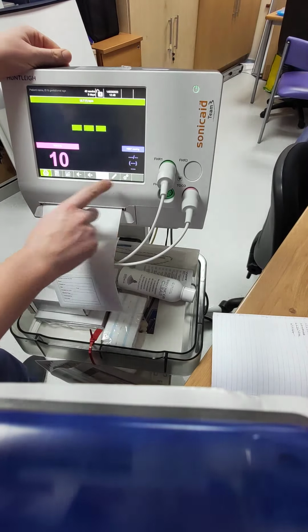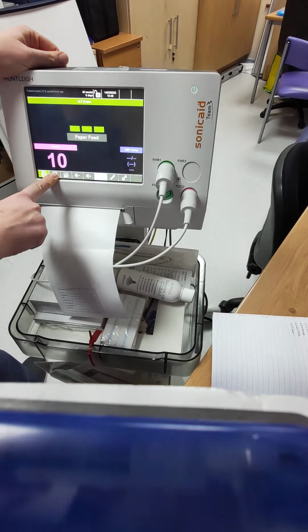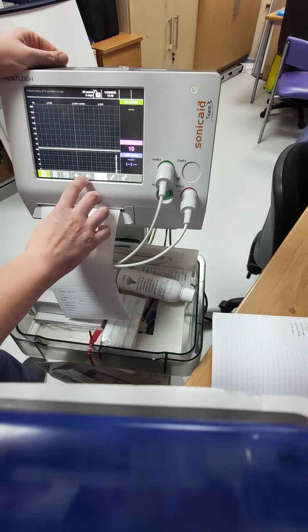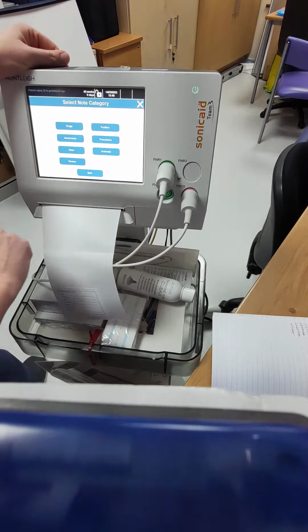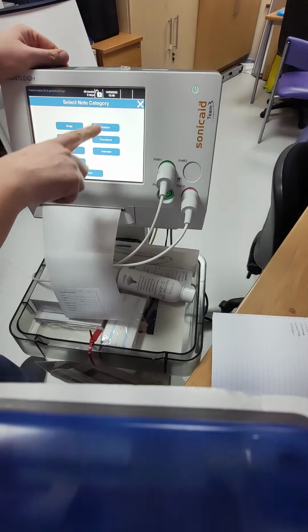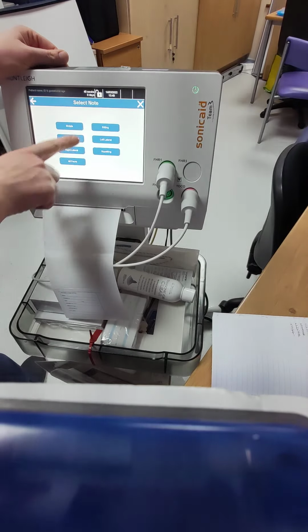Just going along the buttons at the bottom, this one here, if you hold it down, will print out your paper faster. Click that one, it takes you to the graph view. And then you've got your volume buttons, your Dawes-Redman, and then this little pencil here is so you can annotate the CTG without actually writing on it. We need to get out of the practice of writing on there, although it's nice and easy to do. Instead we need to be using these. So for example, if you change the lady's position, you've got all the different ones here.